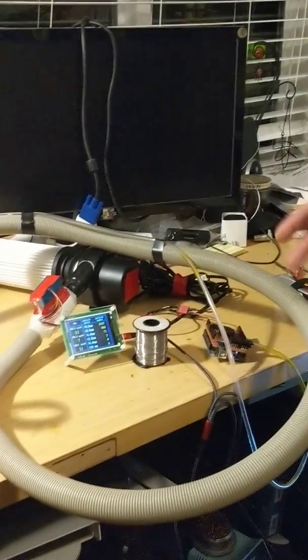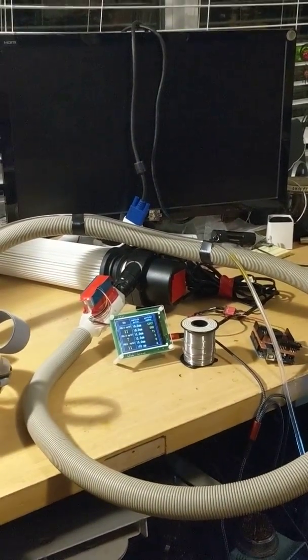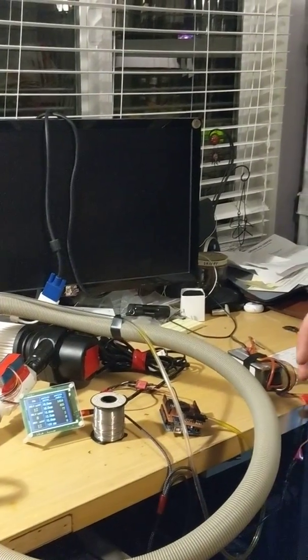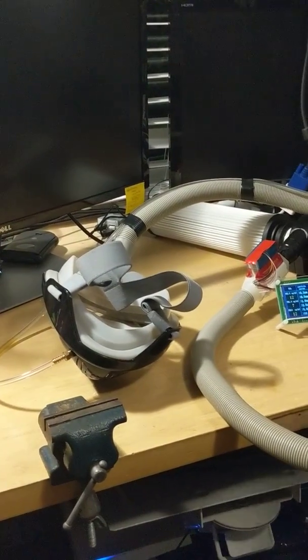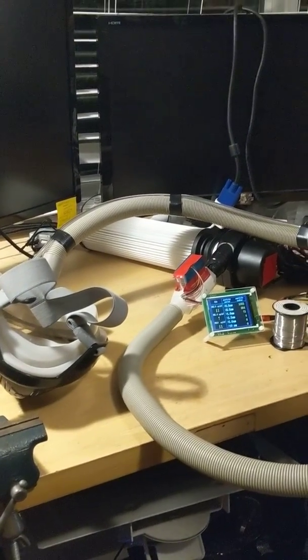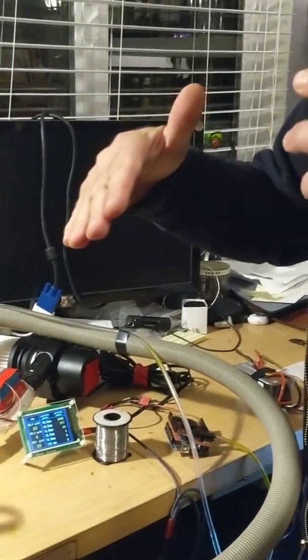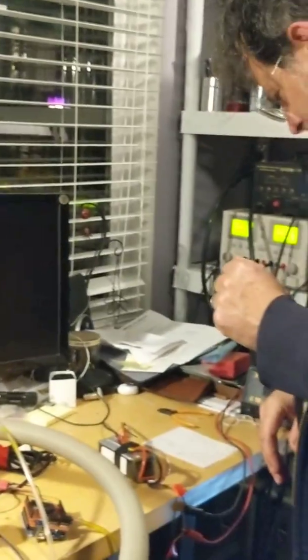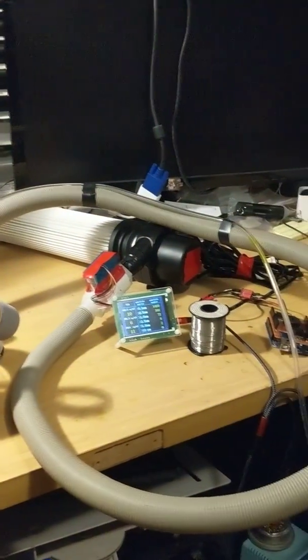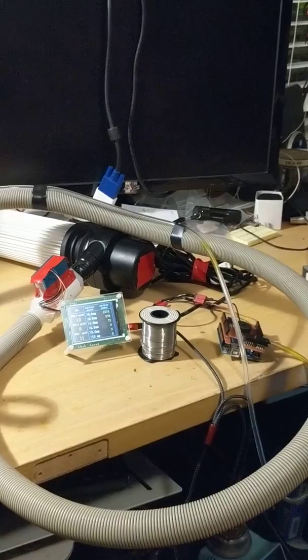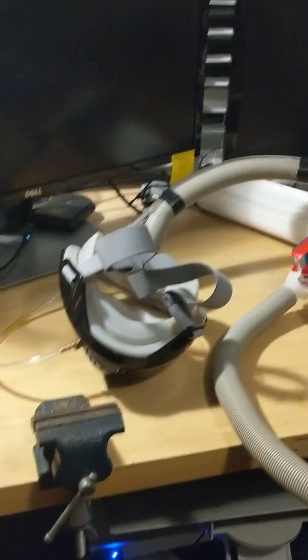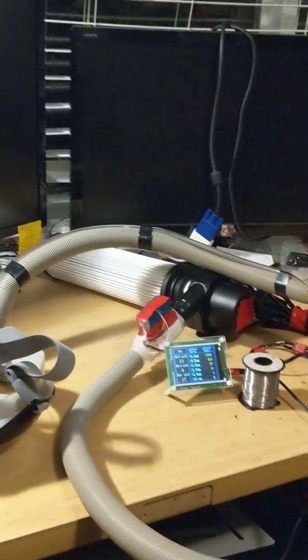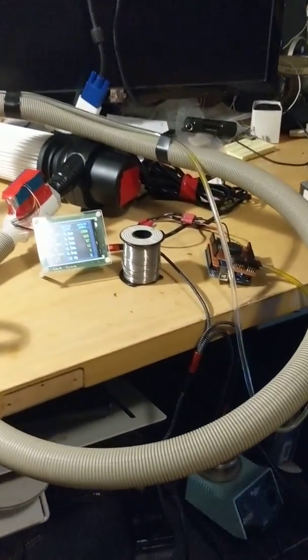So, I'm going to turn this on. And you'll notice a couple things. The alarm will immediately sound because I don't have it on my face, so it's not developing positive pressure. And then, when I put it on my face, you'll hear the turbine slow down, and the alarm will go off while it's busy regulating. And then, notice the air quality improving as the HEPA filter filters the air. And then, finally, notice that the motor responds to my breath. When I breathe in, the motor will speed up to maintain the air pressure. When I breathe out, it will slow down. So, here we go. I'm going to plug in the battery here.